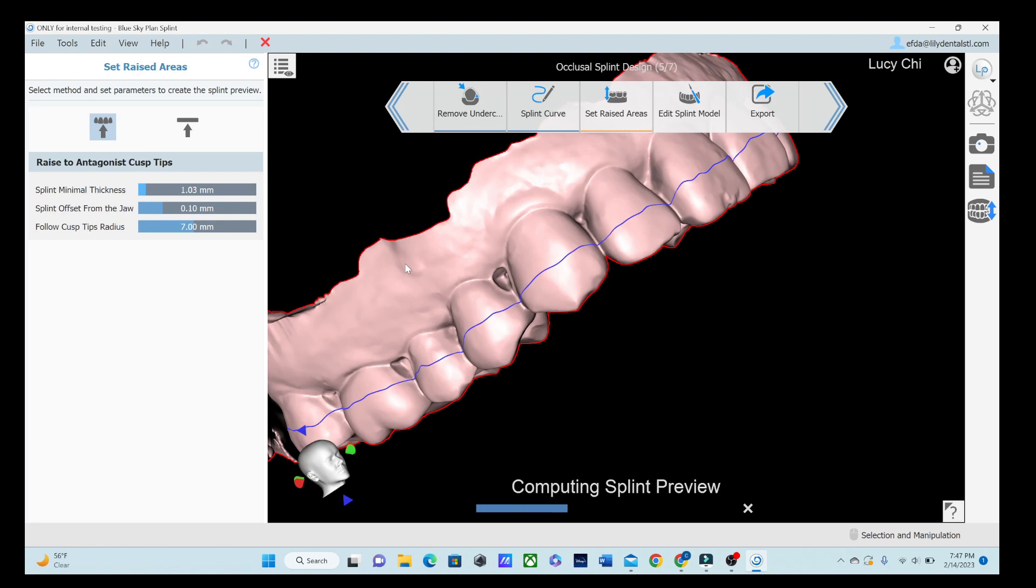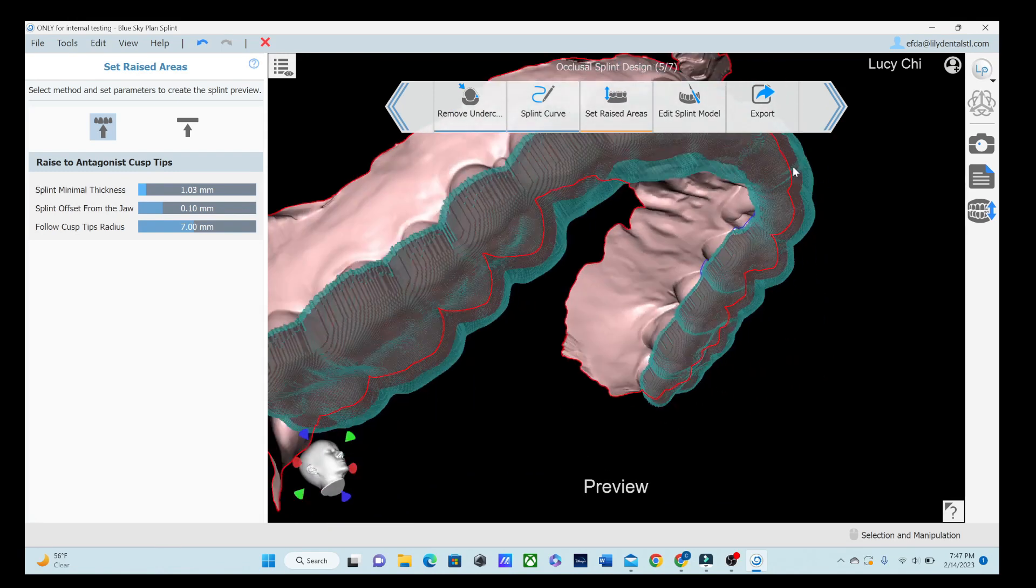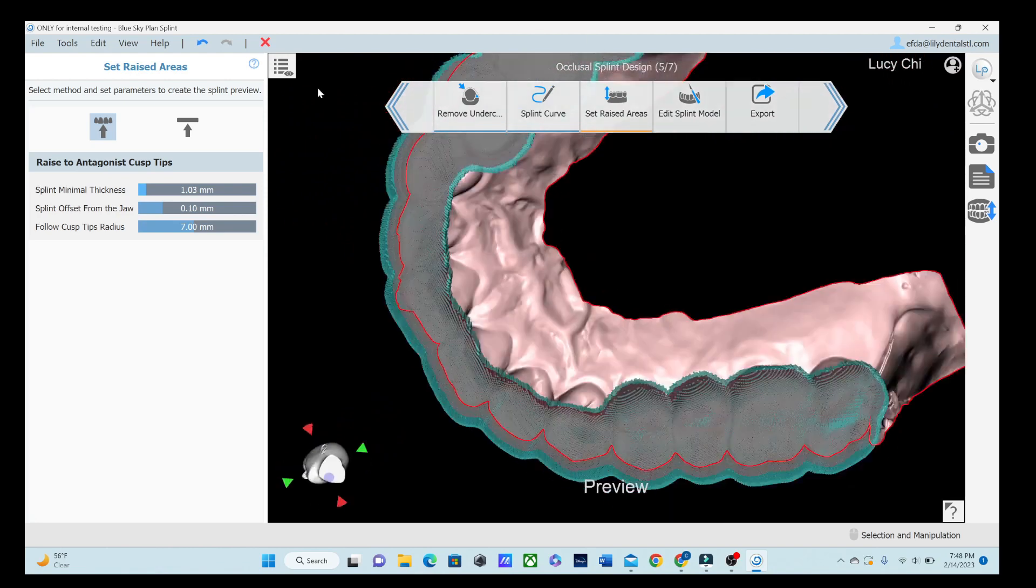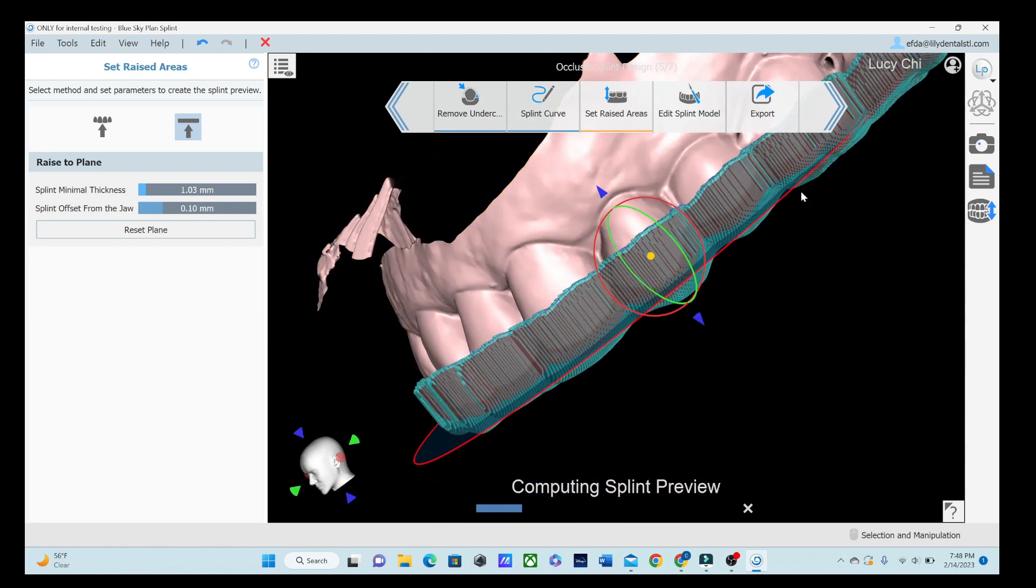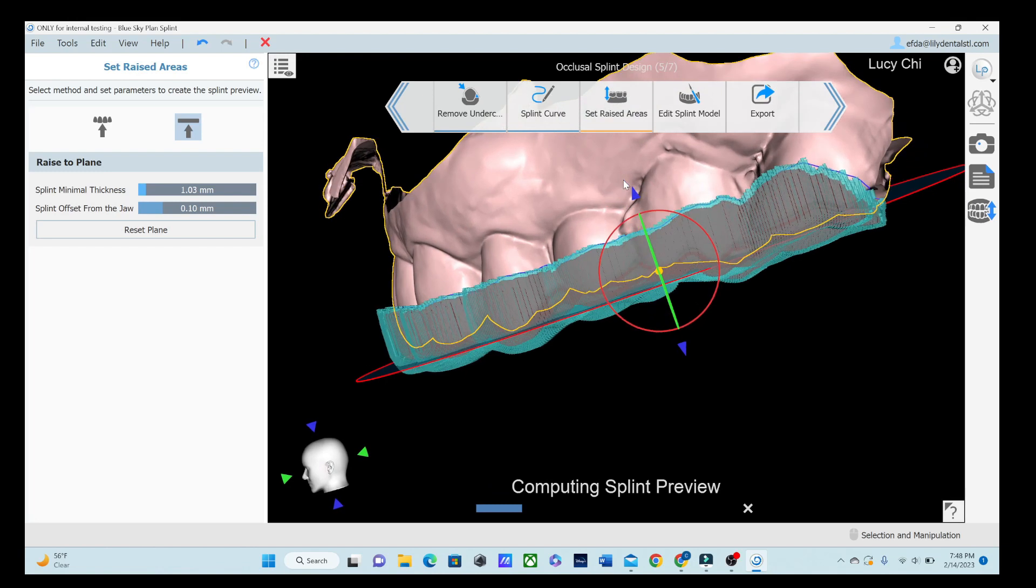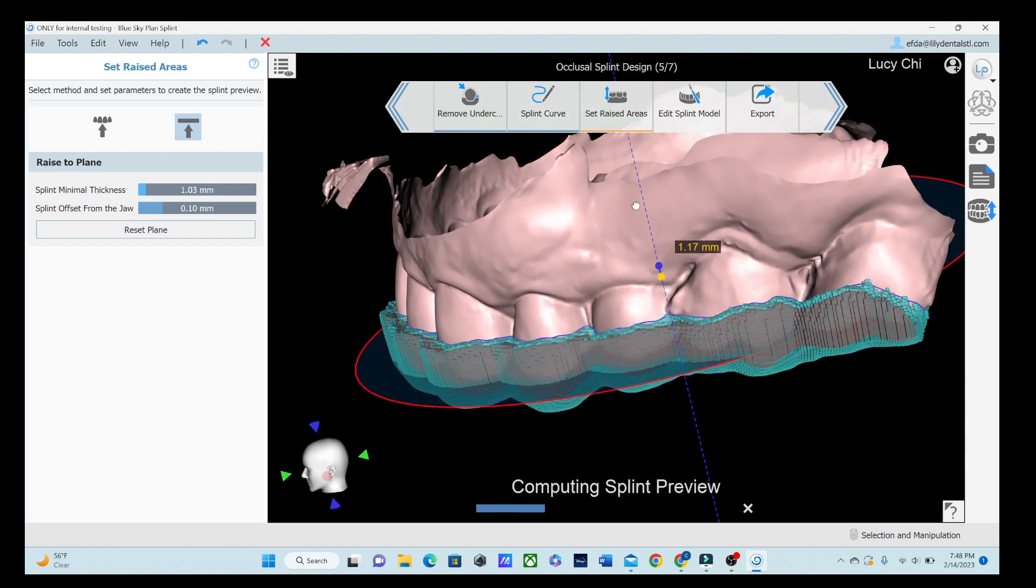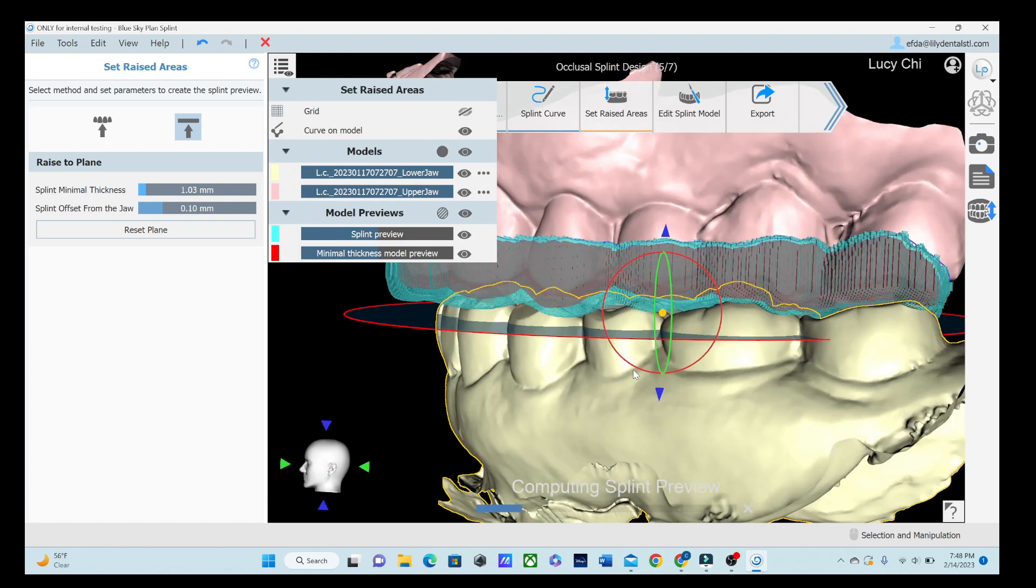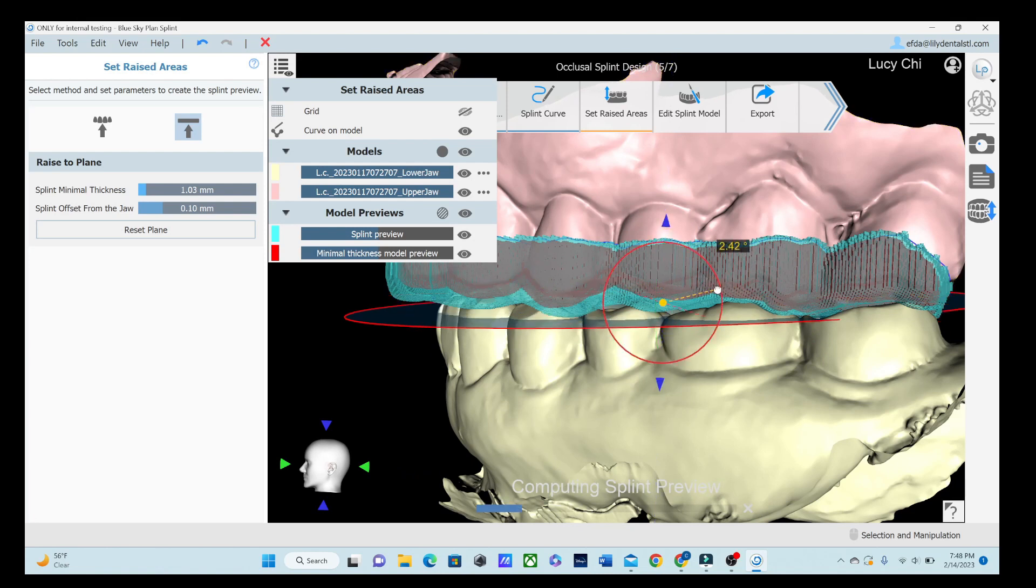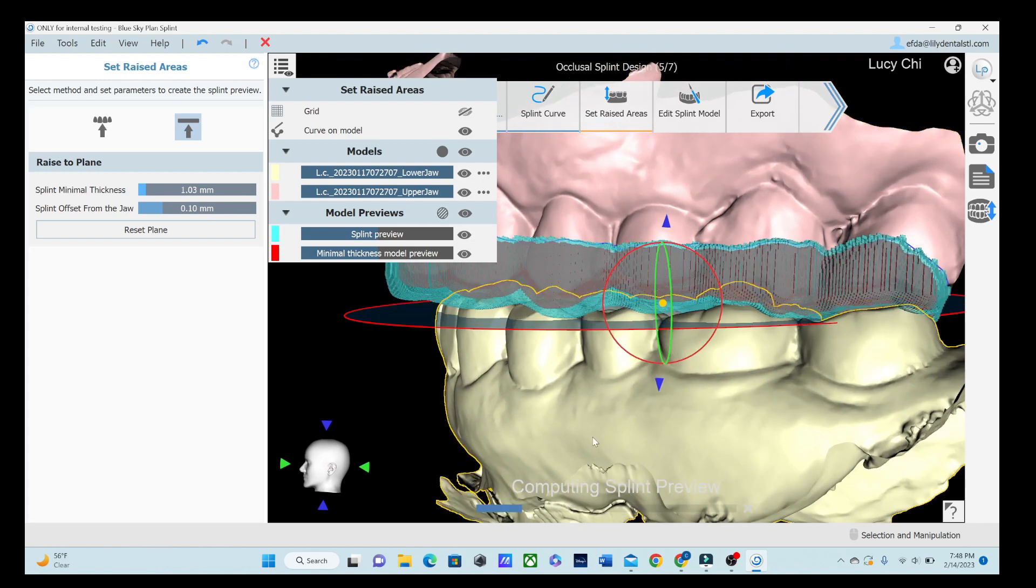I should note my computer at home is really slow right now. I don't have great internet, but it should be a lot faster at home and you should be able to get through this part pretty quickly. So as we can see, we raised those cusp tips and you can see it's kind of like scalloped looking right there. So that's giving us the preview of the splint. Or we can go this way. Or we can say, if you aren't caring about the bite very much and you just want a little guard, you can go up and it won't raise those at all. It'll just be splinted around it, but I know I don't want that. Let's go into the view though and turn on that lower jaw. I don't want those teeth sinking that far into it. So yeah, it looks like it's about 1.5 millimeters. Let's give that a try.